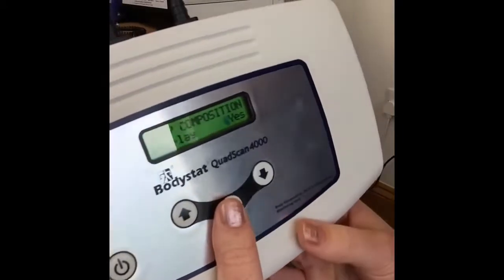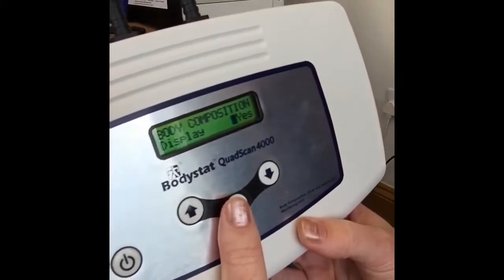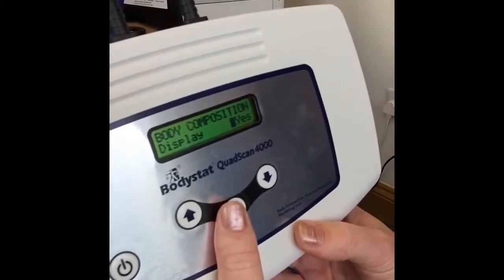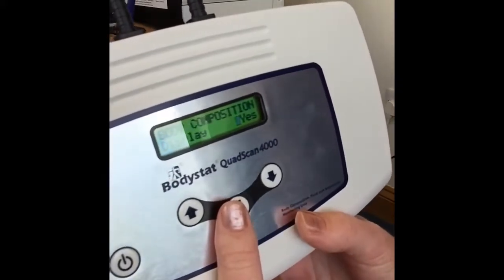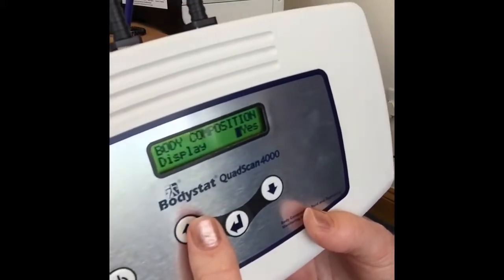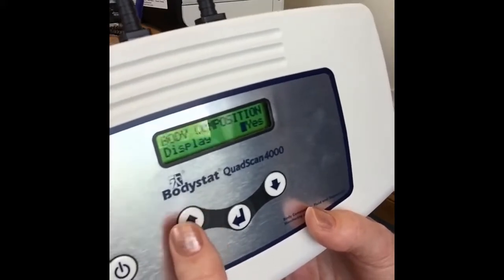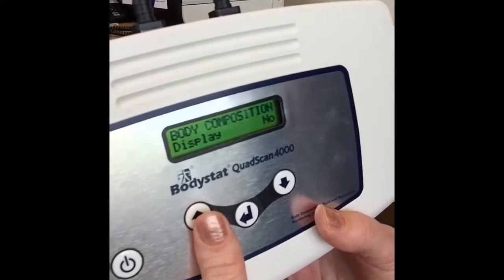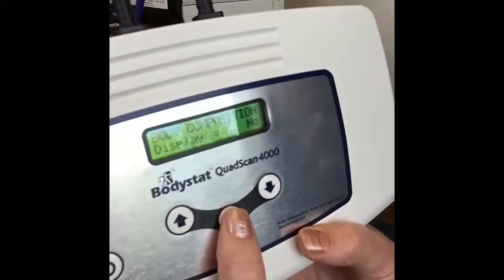You now have the option of keeping the body composition or hydration values showing. So for example, if you're only interested in hydration values, intra and extracellular water, total body water, for example, and you're not interested in any fat or lean or metabolic rates values, you can actually choose to turn off all body composition results. And then it won't ask you to add in your age, your gender, and that kind of thing. And you can press enter.